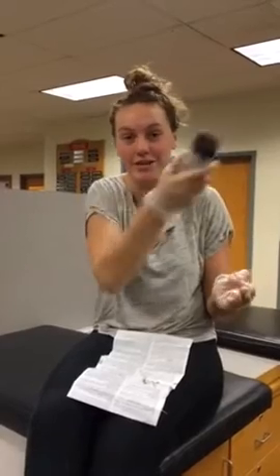Hello and welcome to Savannah's Urine Analysis Tutorial. We use urine analysis to check for hydration levels and infection, mainly in wrestling athletes.